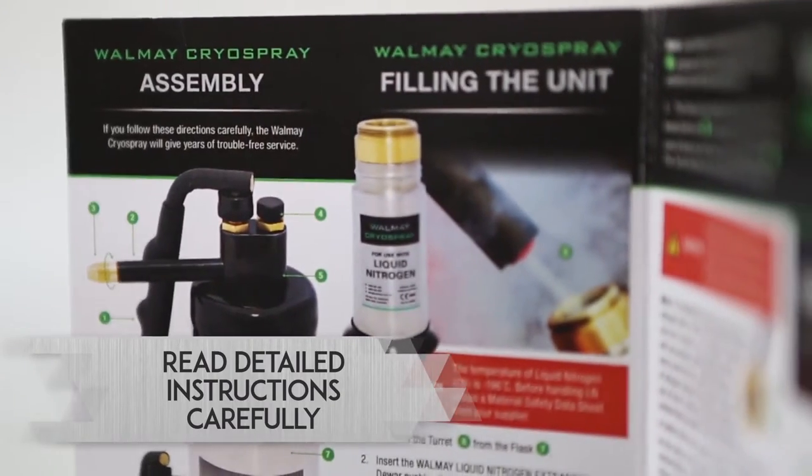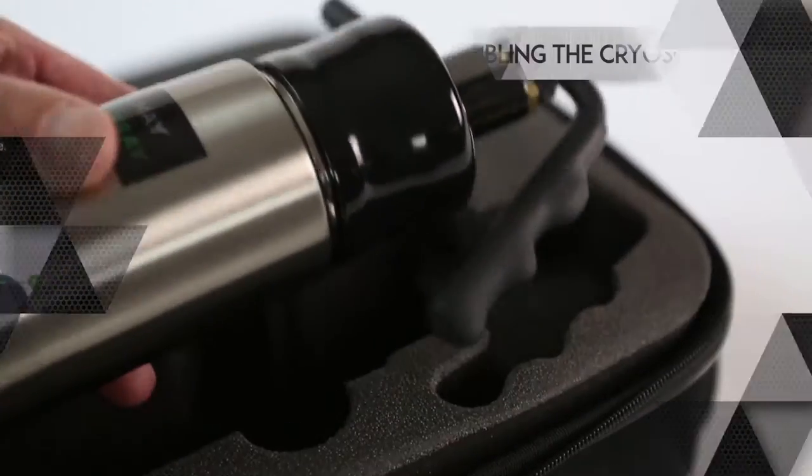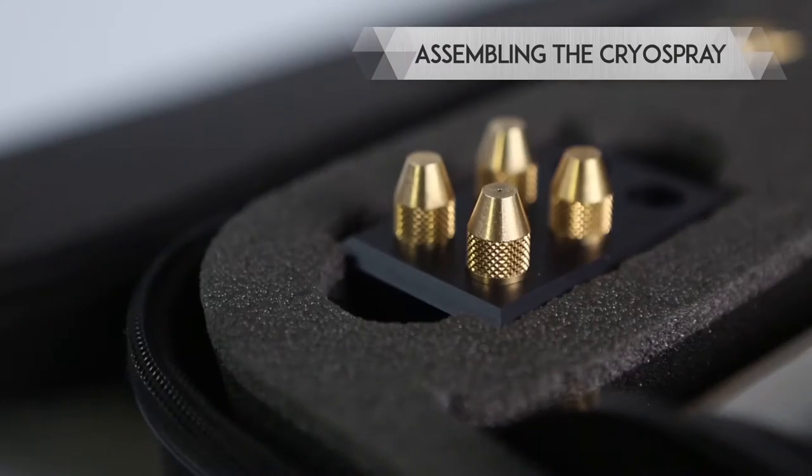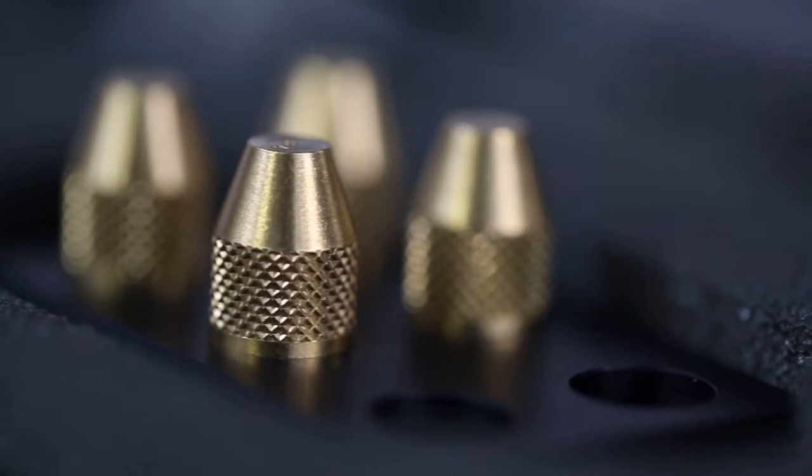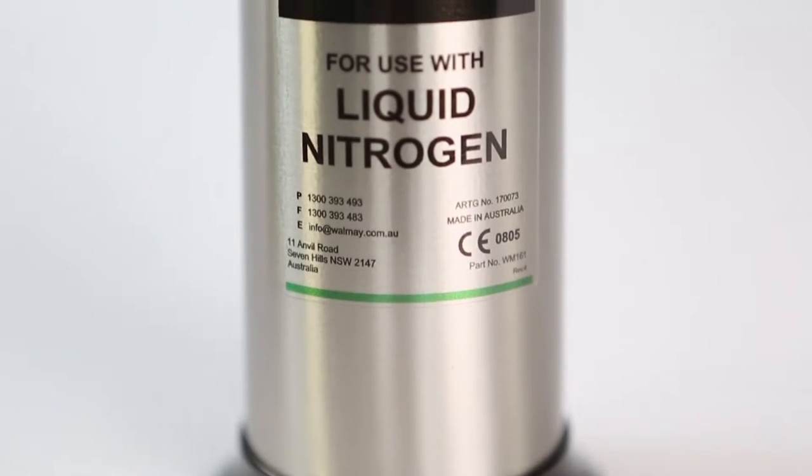Walmay's Cryospray kit is user-friendly and easy to assemble. Remove flask, tips and tray from the carry bag. Select a spray tip.